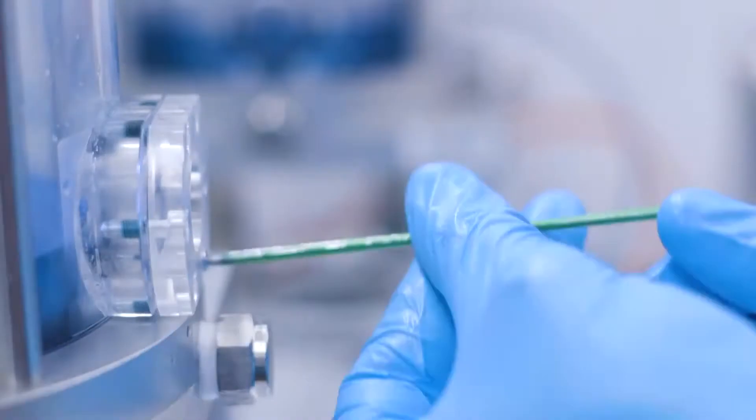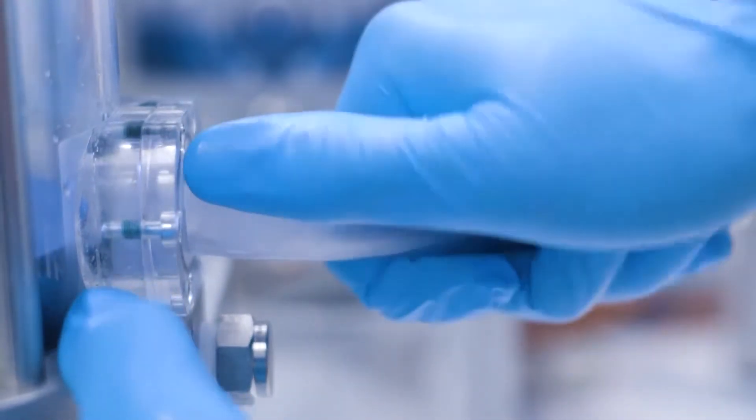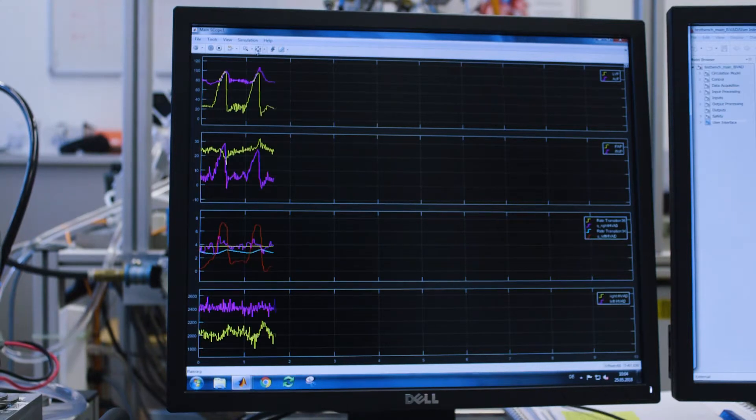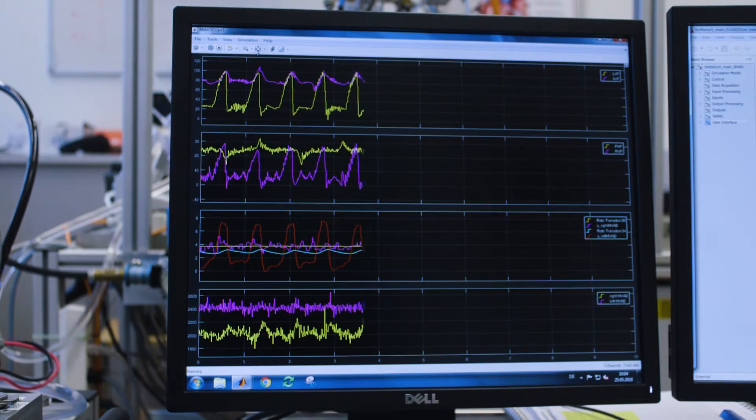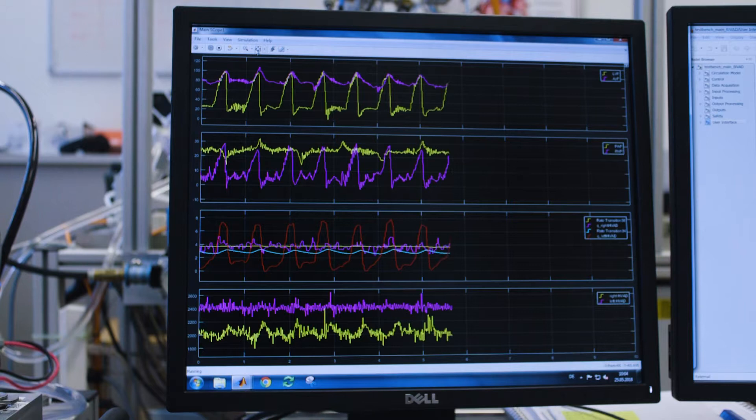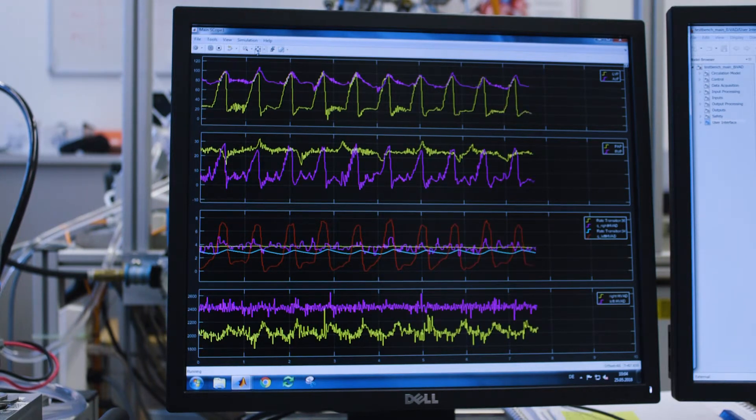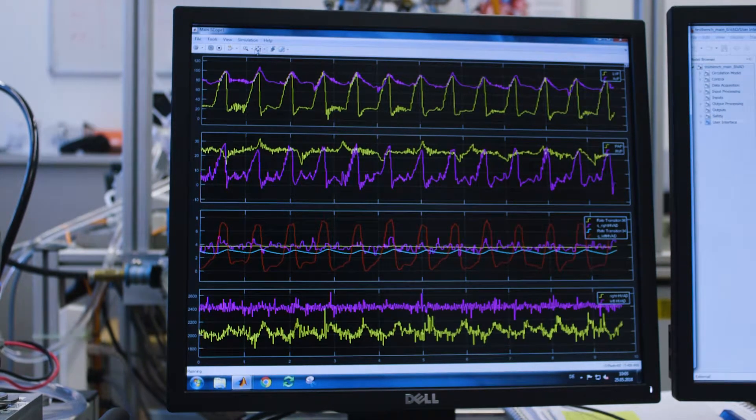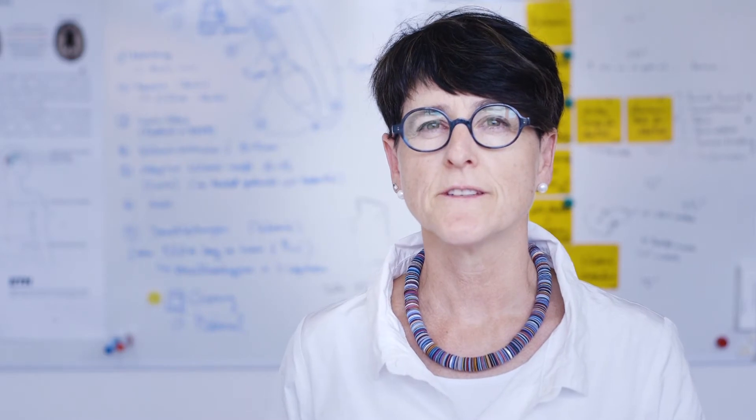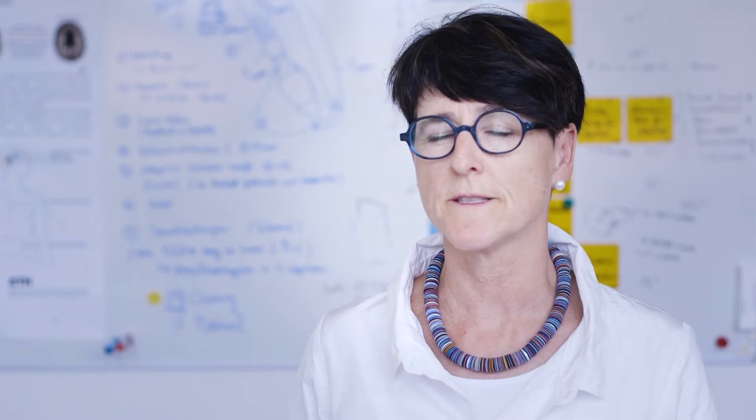This hardware-in-the-loop based versatile hybrid mock circulation is an important tool for numerous functionality tests of implants as well as of physiological controllers. Its strength is the ability to switch the test environment by only changing the numerical model that corresponds to the specific investigation.